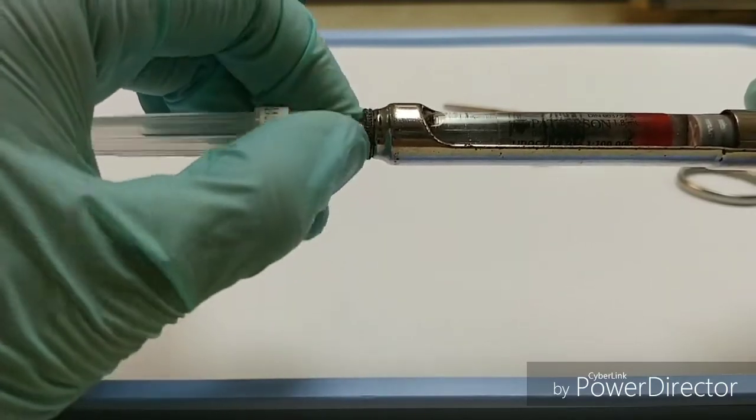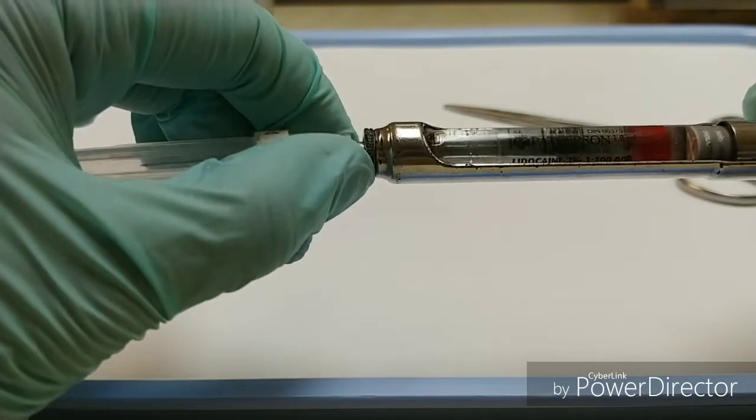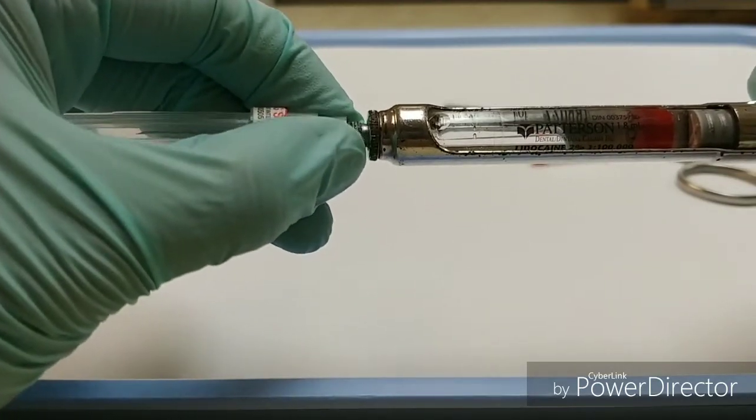I'm also taking care not to remove the needle adapter from the syringe. I'll have to pull it a little bit since it gets stuck in the diaphragm.